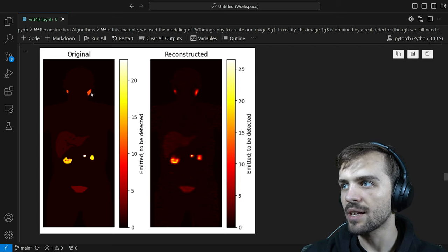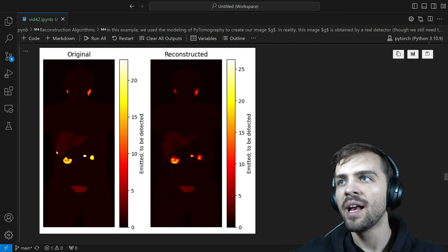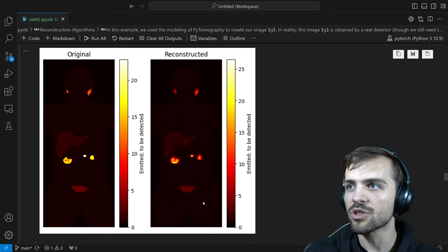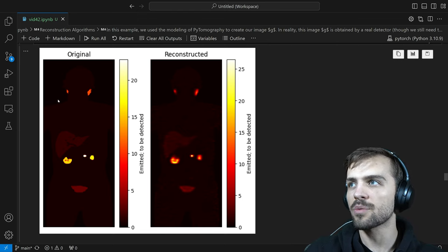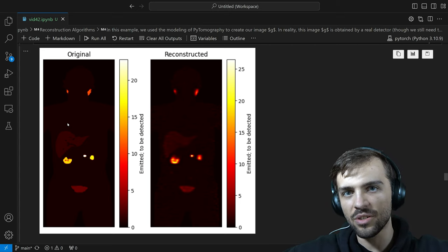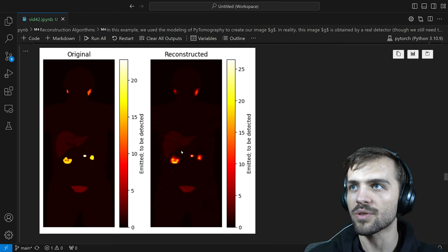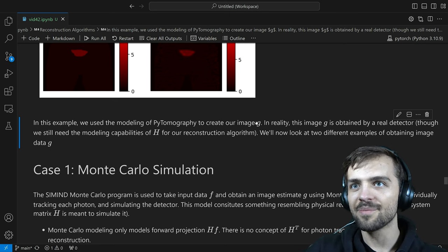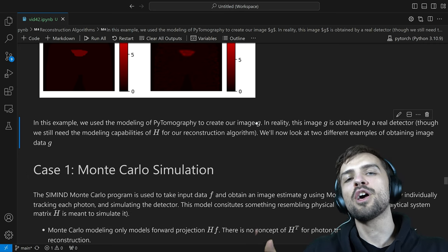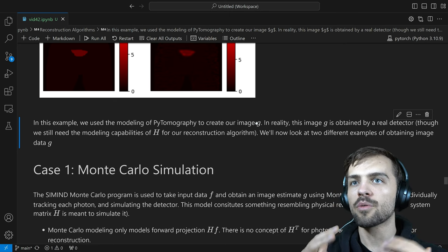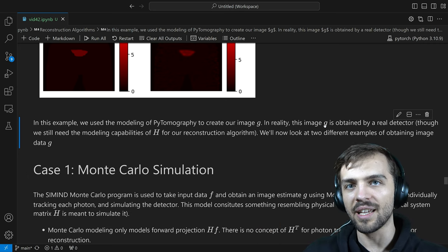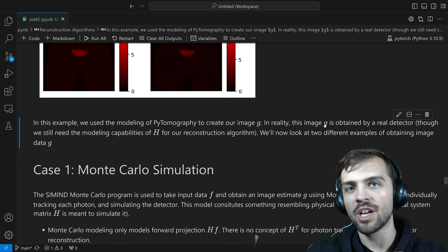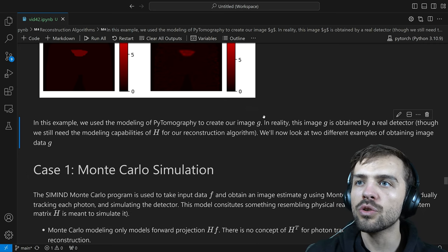This is the original F we started with before creating projection data G. In the reconstruction algorithm, we use G and the system matrix model to reconstruct what we had projected. This is what a reconstructed version of the data would look like. You might notice we essentially used PyTomography's modeling to create G — so our system matrix H in the reconstruction algorithm perfectly matches how we created that data. In reality, G is obtained through an actual SPECT system, and you have to make sure your system matrix H accurately reflects that system. So let's look at external sources for our image data G.